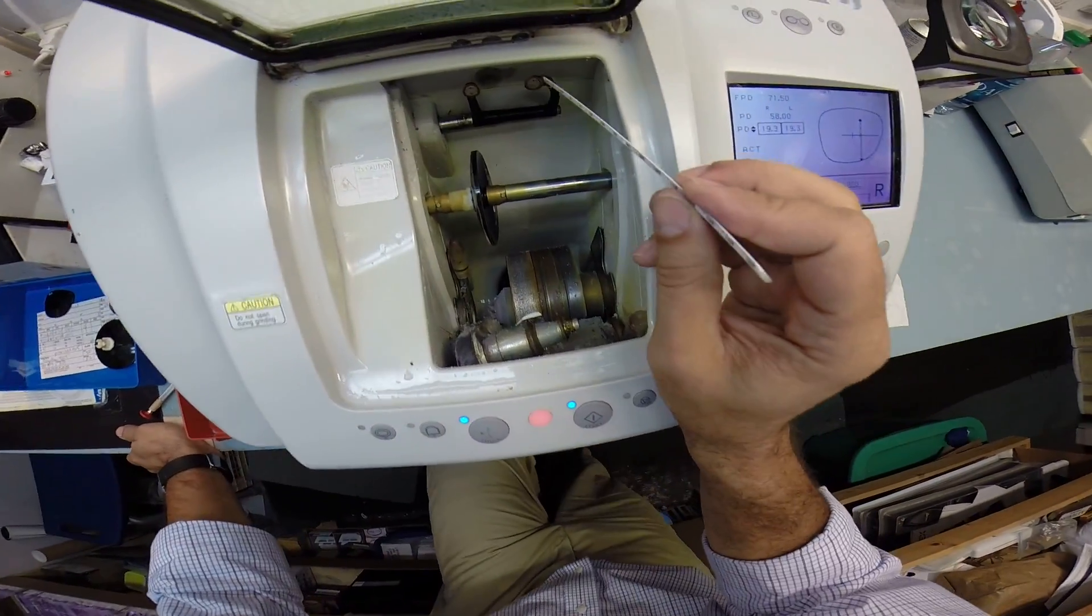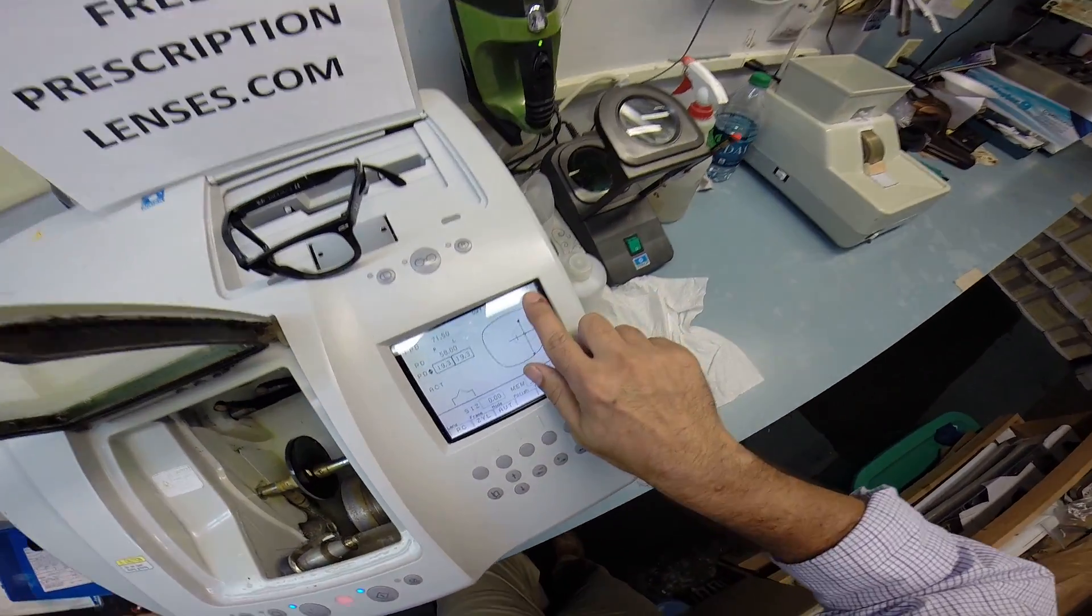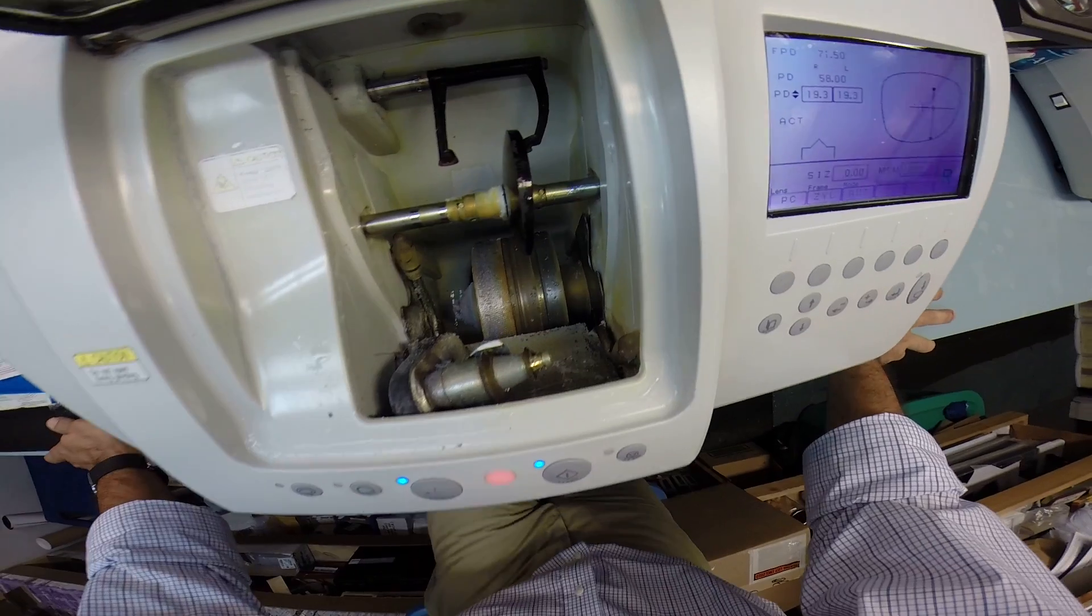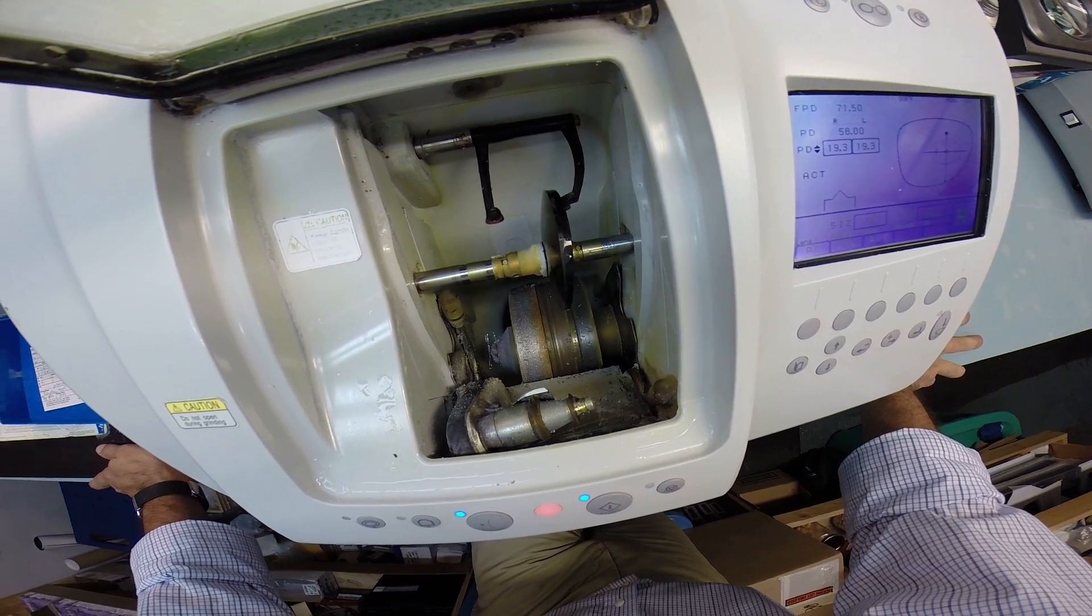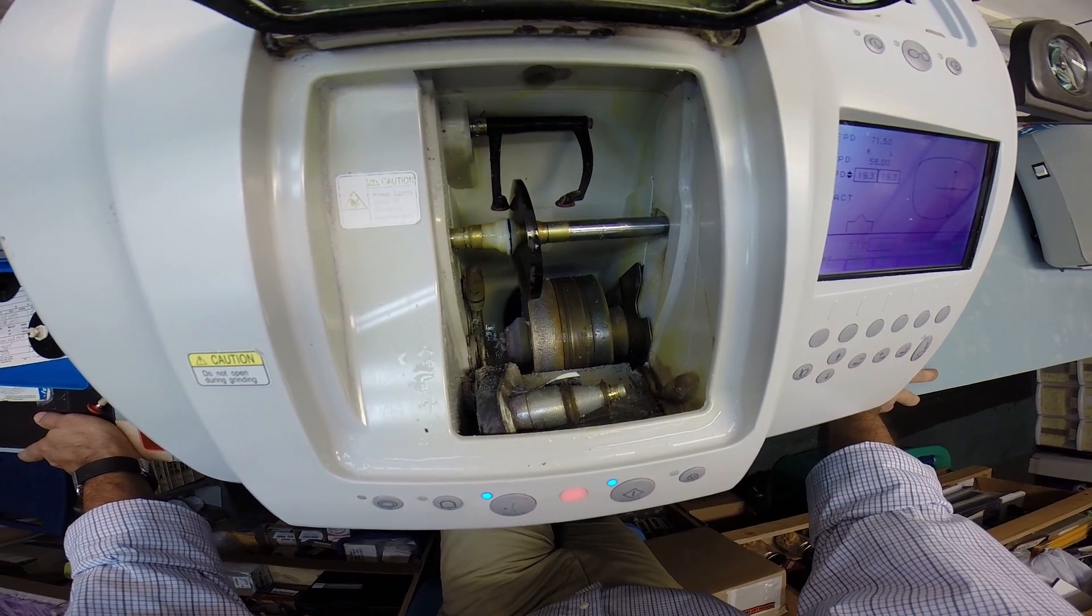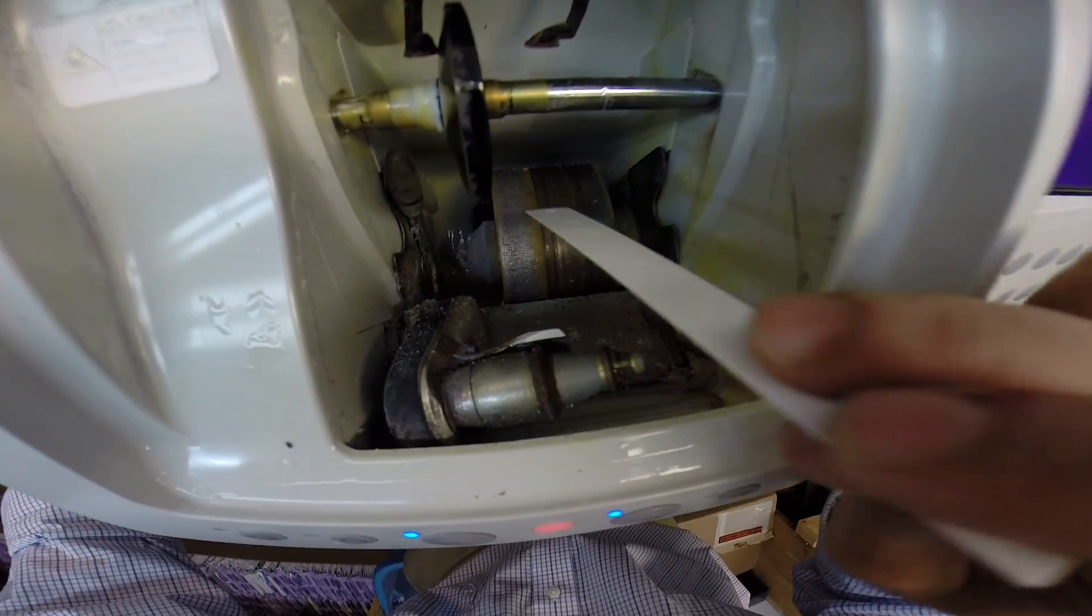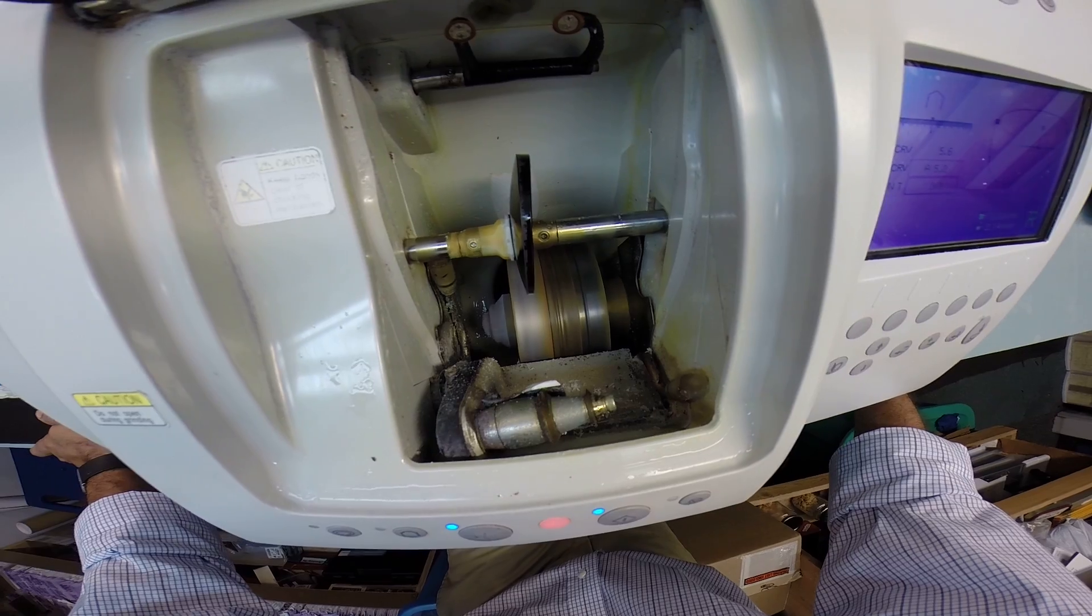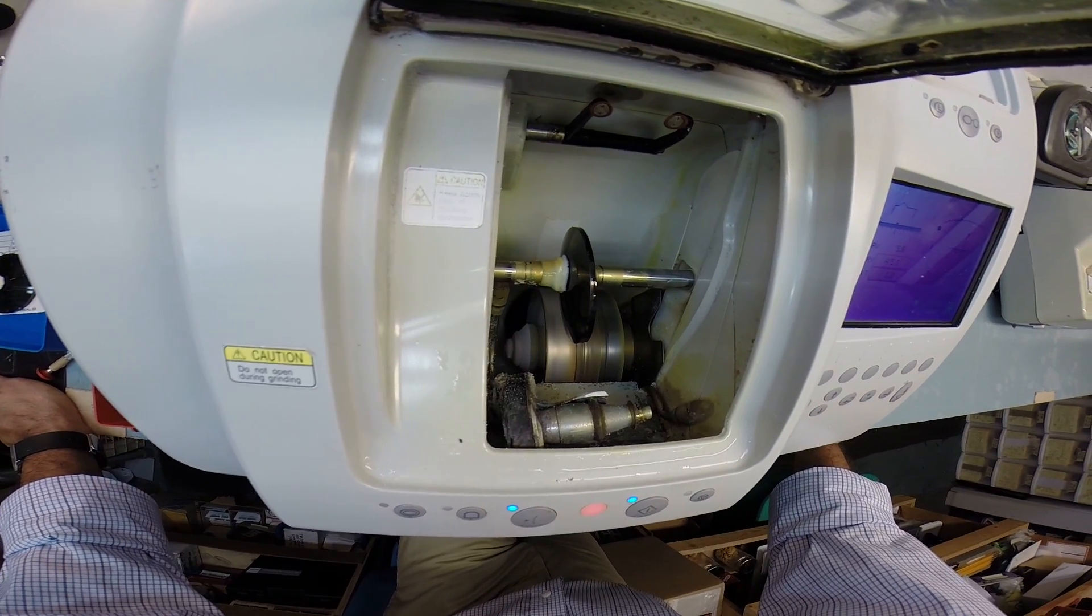So, these calipers are going to come down. And it's going to trace the shape of the right side of your frame onto the lens to make sure that this lens is large enough. And as long as it's 69 millimeters, and this one is, it is going to cut out. So, it's always going to start on the back surface, the rear surface closest to your eyelashes. Then it's going to move forward and trace the shape of the front side. I just want you to see as your prescription lens touches down onto the cutting wheel.